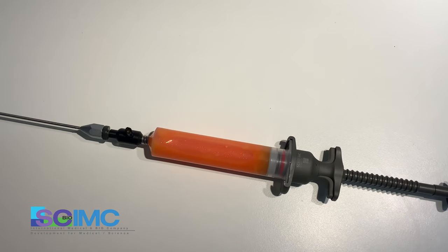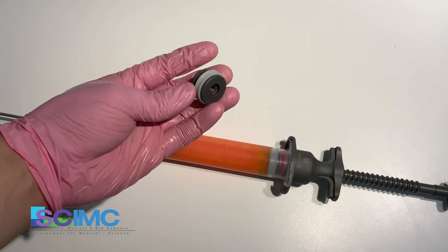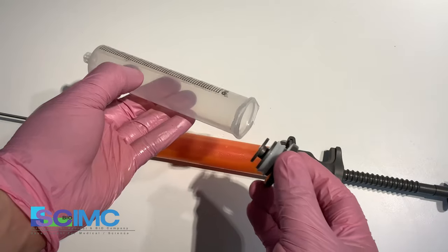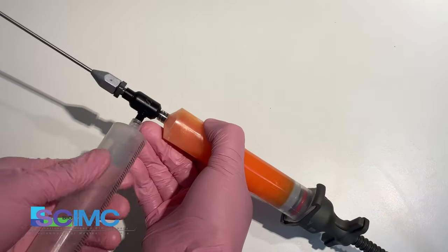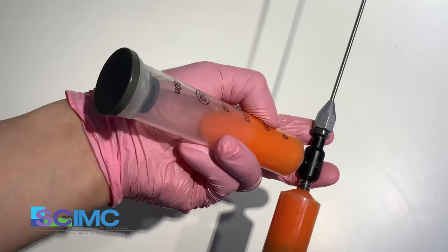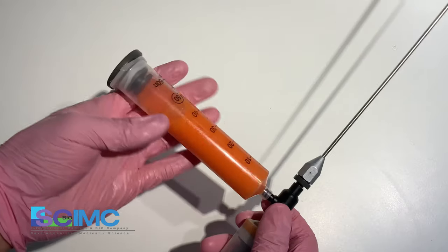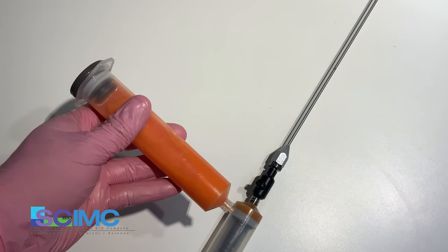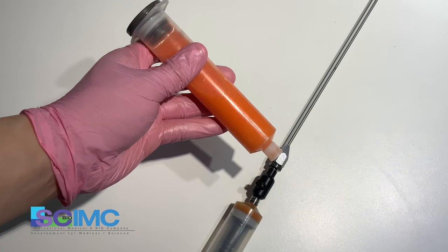Prepare the centrifugation for condensed fat. Here, another piston. The piston cap connects to empty syringe. Connect the suction adapter and hold tight and push it slowly. Remove the syringe and close the cap. Ready for centrifuge.